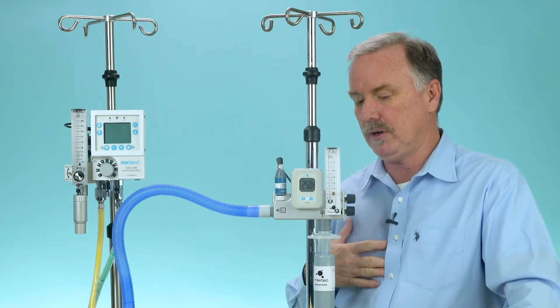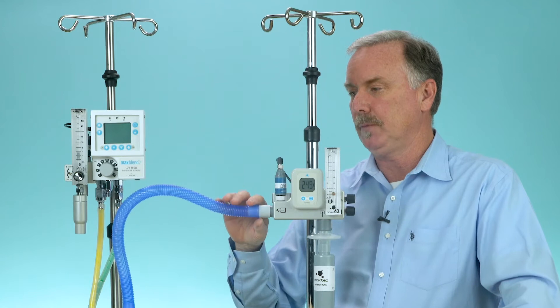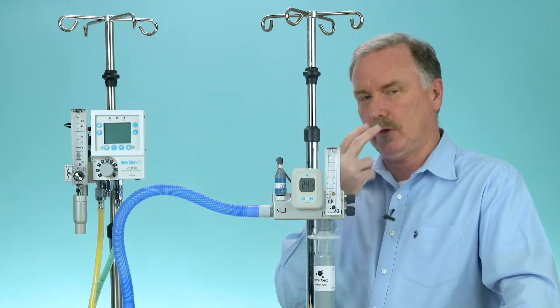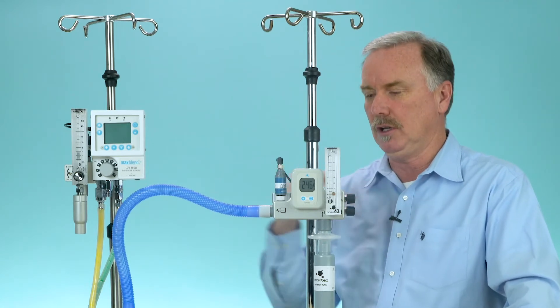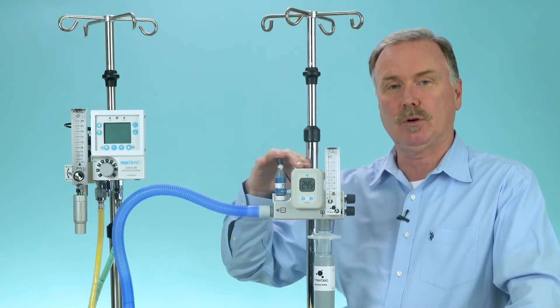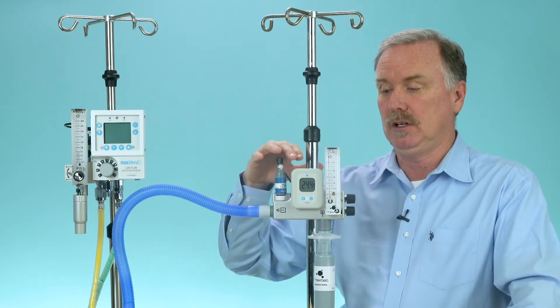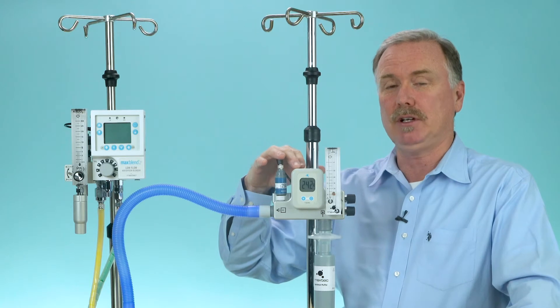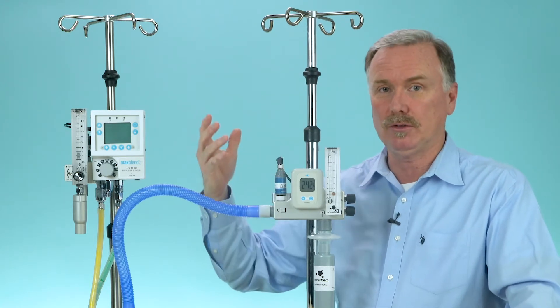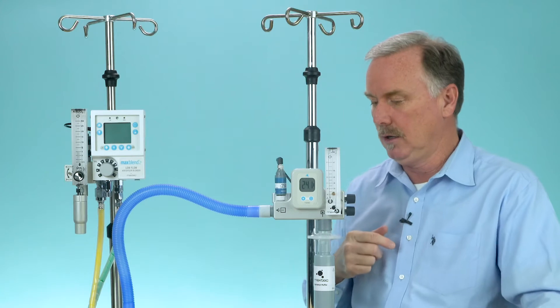Remember, there's a very specific definition in our IFU talking about the interface or the type of cannula, the type of circuit. The Max Venturi is not intended for neonates — it's really only for large pediatric, small adult, and adult patients. That's based on cannula size, and here's why.